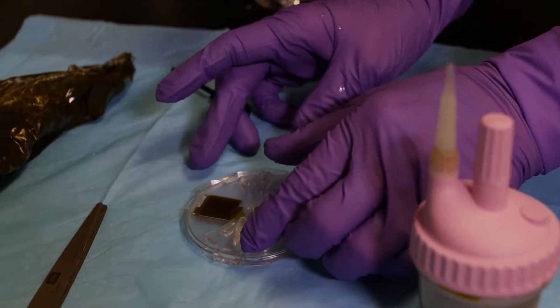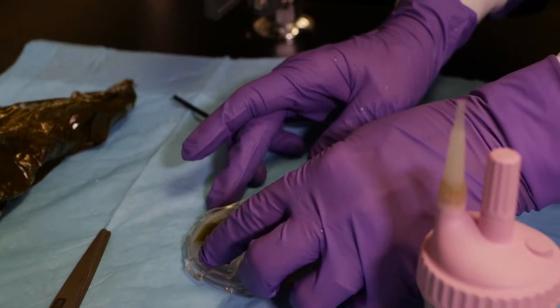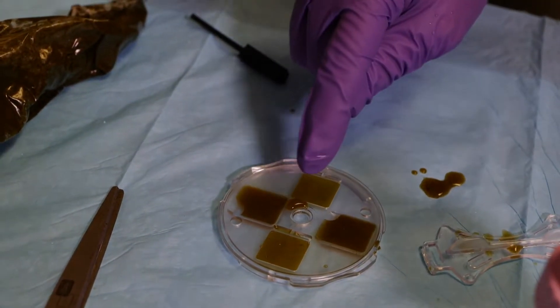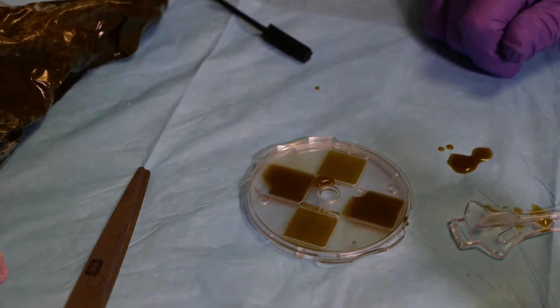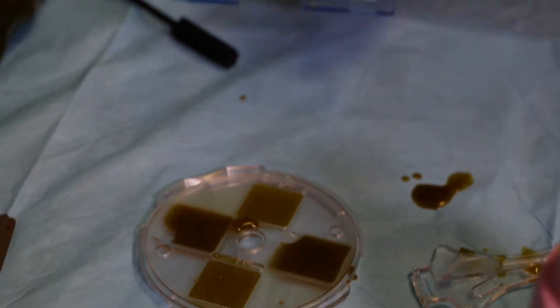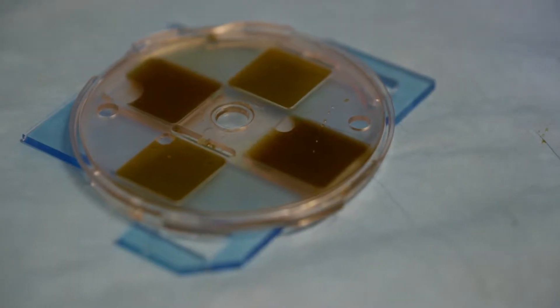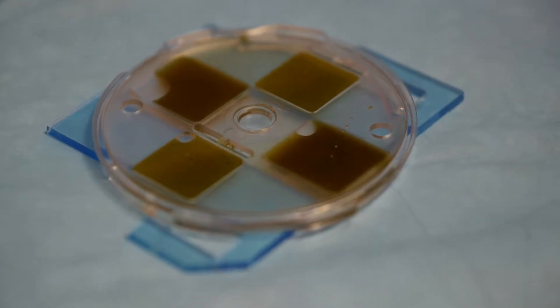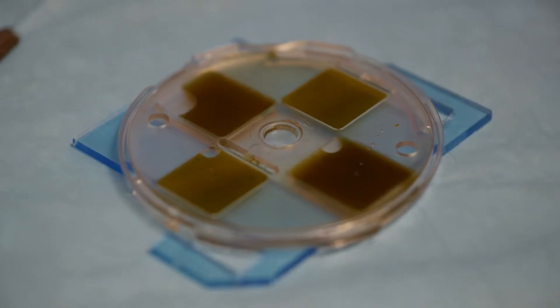Once the 10 minutes is up, we're going to turn and remove the key, and then we read both of those sides. This part here is to hold it onto your microscope, and you'll need a counter to count all the eggs in both chambers.